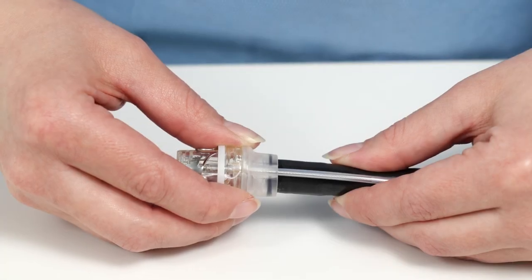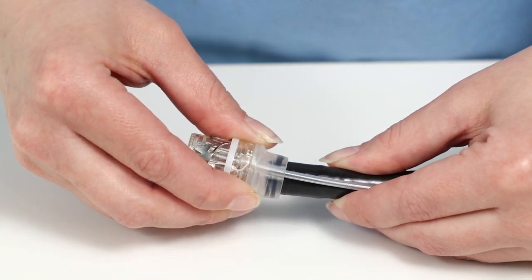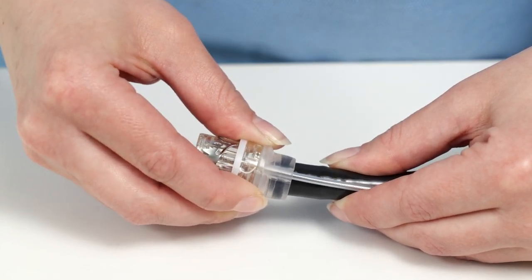Slide the cap further onto the endoscope shaft with slight lateral tilting movements, which also protects the endoscope sleeve.